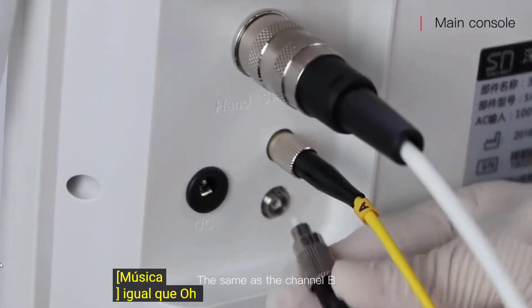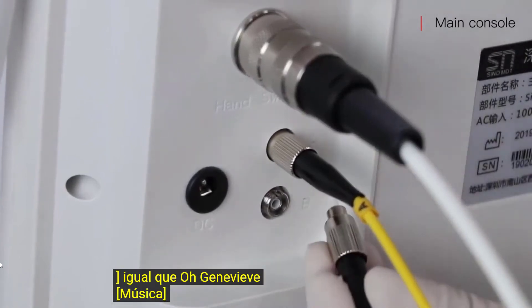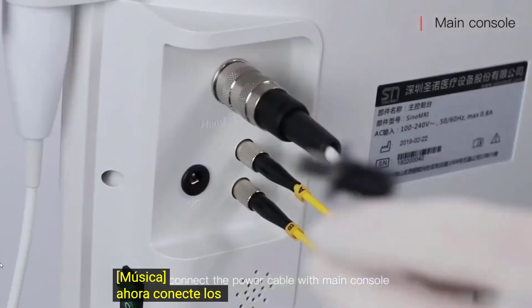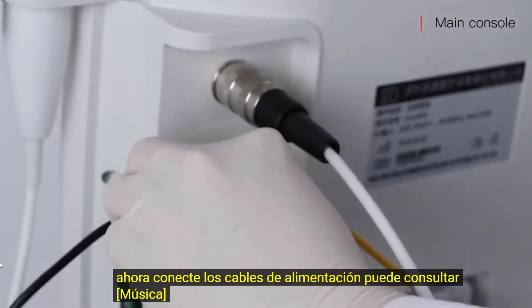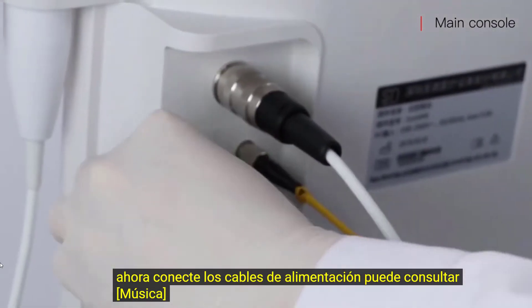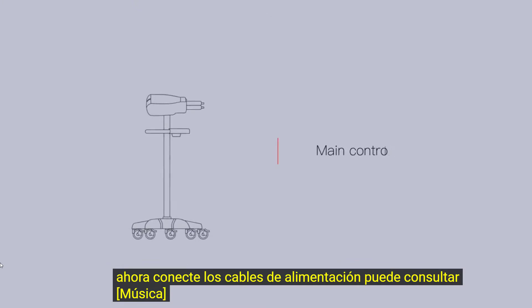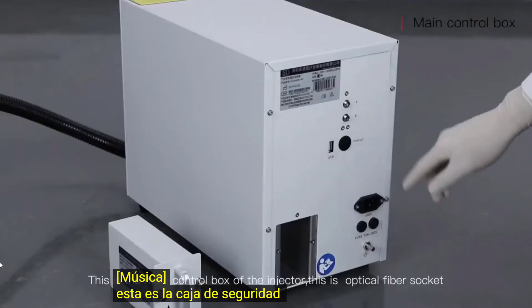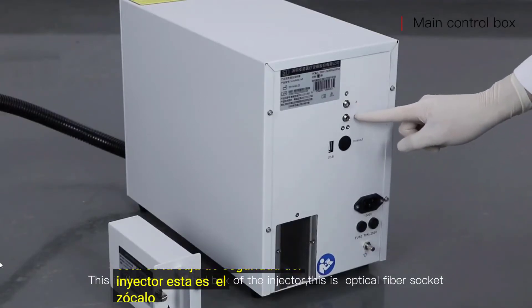The same applies to channel B. Now connect the power cable with the main console. This is the main control box of the injector. This is the optical fiber socket.